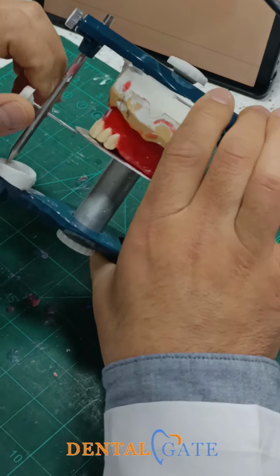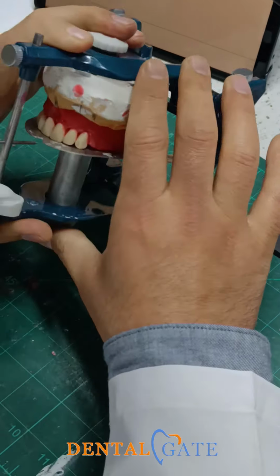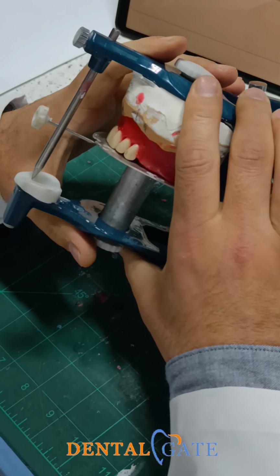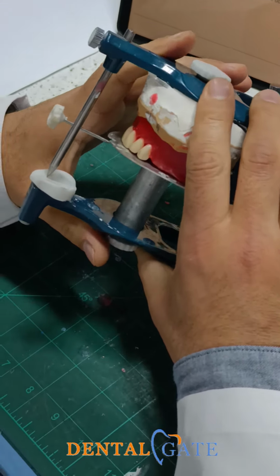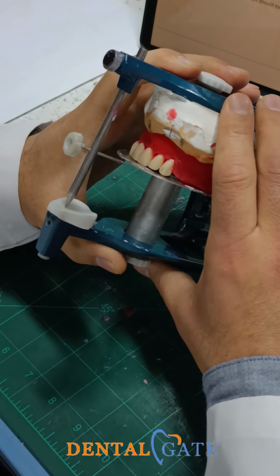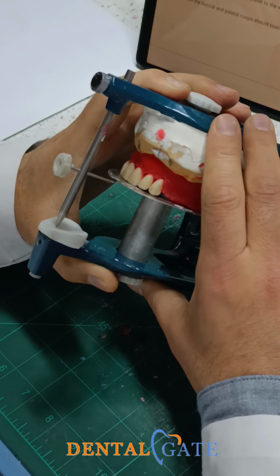Make arrangement to the posterior teeth. So the posterior teeth involve important criteria to be established as in anterior teeth. What's the benefit of this criteria to establish the proper occlusal plan?